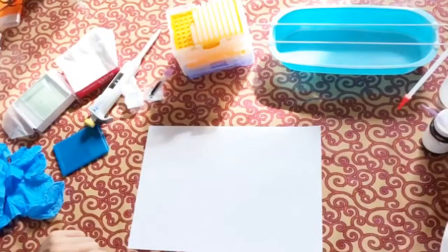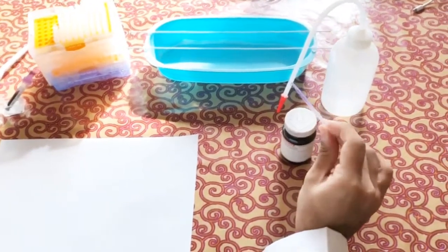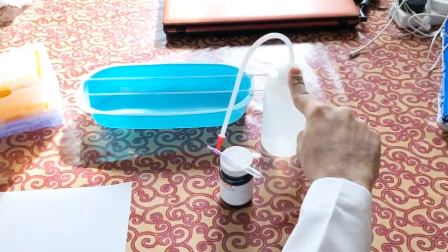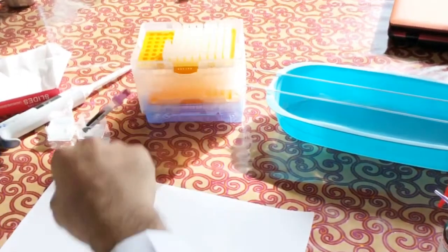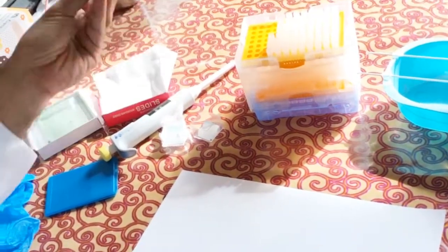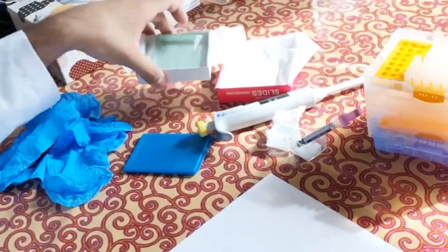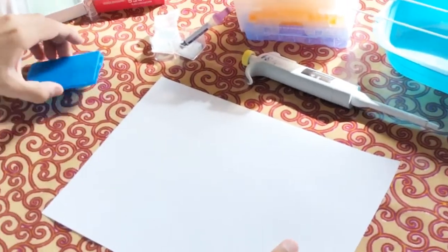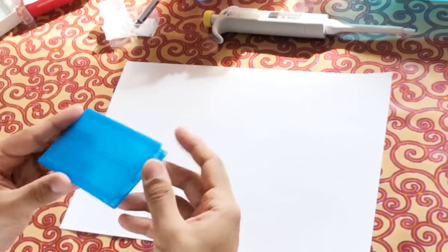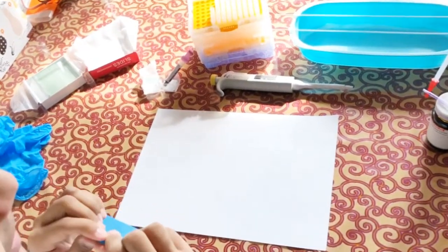The materials required for preparing the smear are: Leishman stain with a pipette, distilled water in a bottle, a slide drying and staining rack, micropipettes, freshly collected EDTA blood samples, cover slips, prepared slides, a pair of gloves, a white sheet of paper, and a slide holder for storing the finished slides.